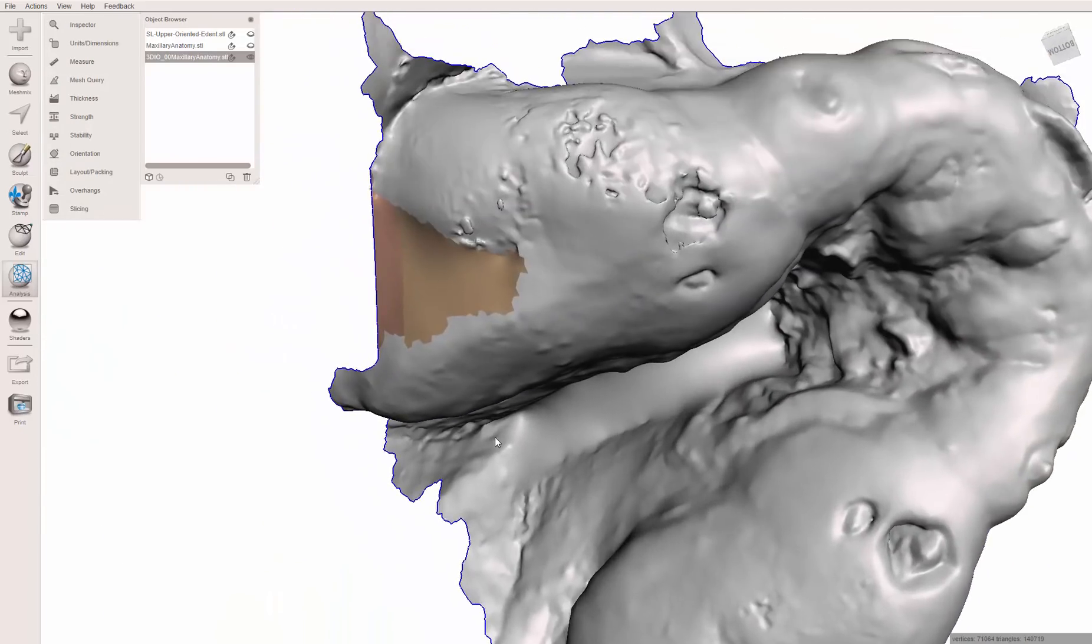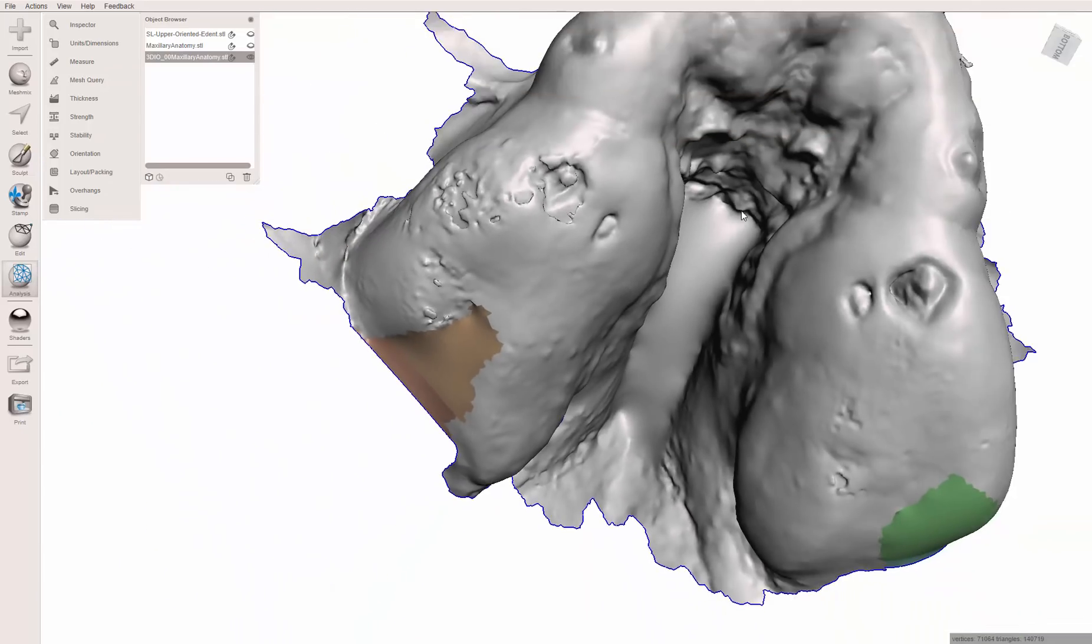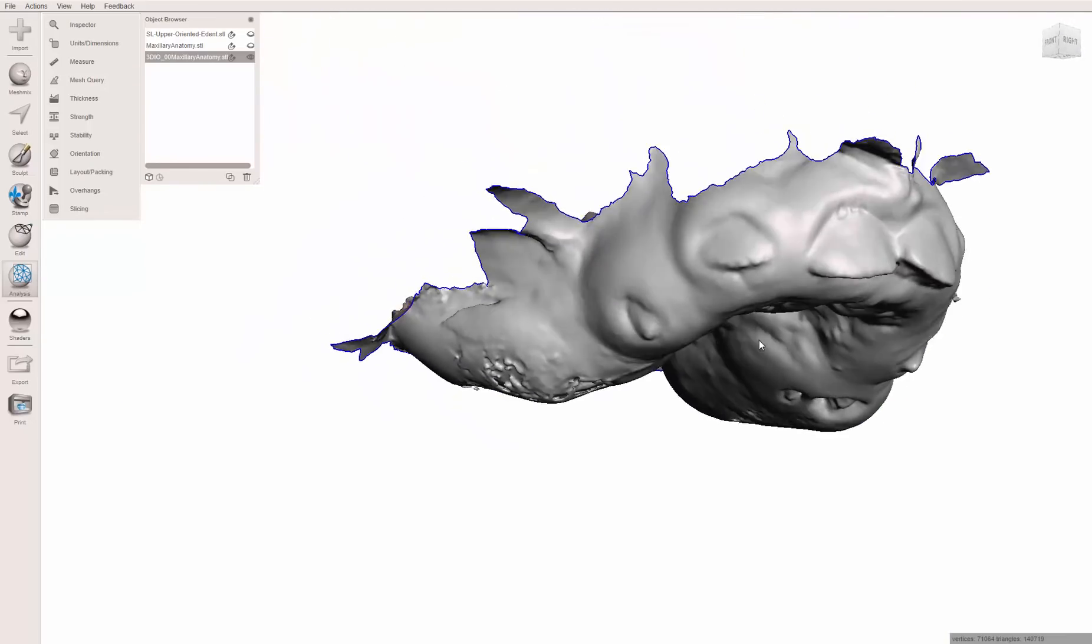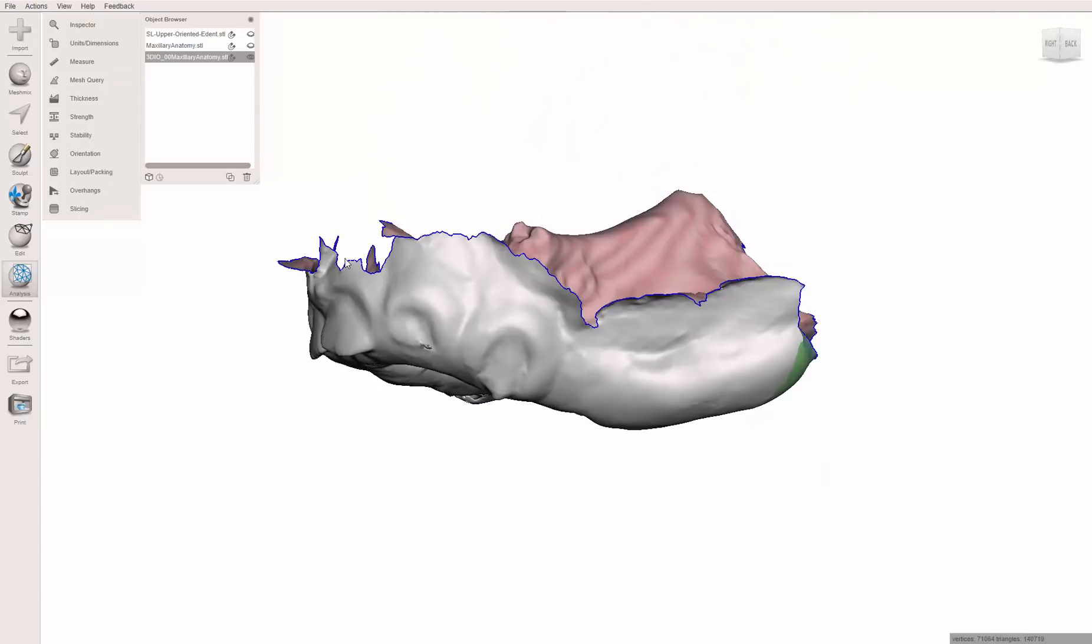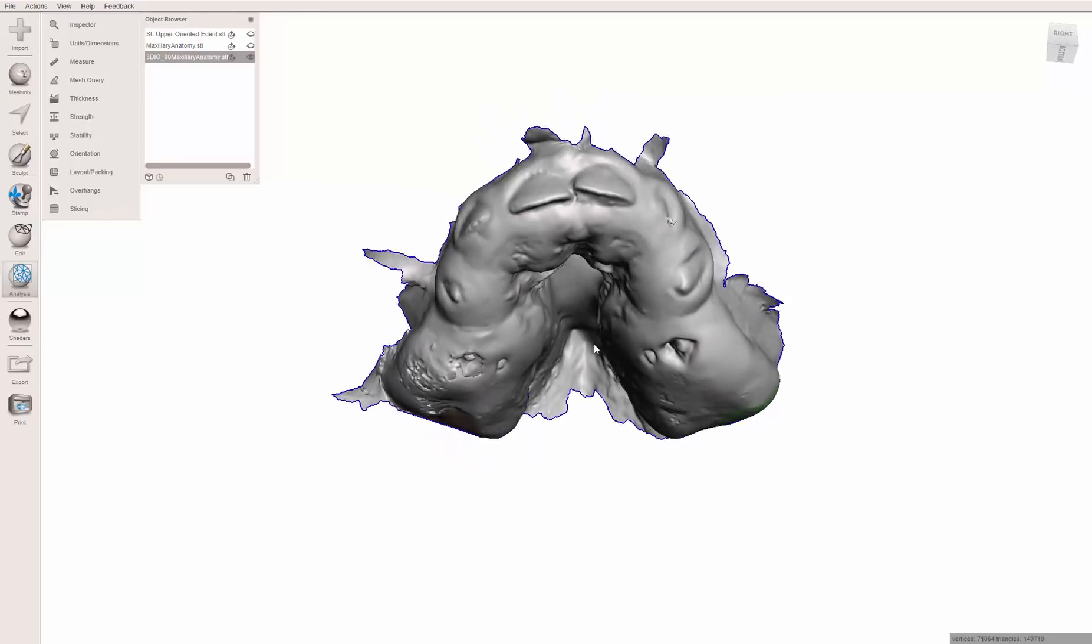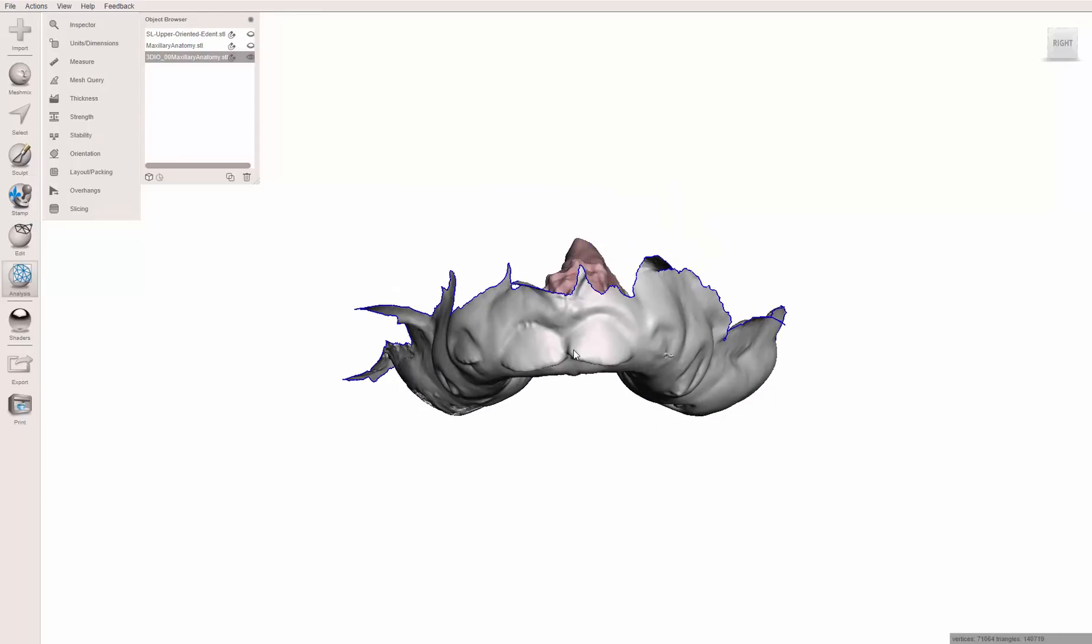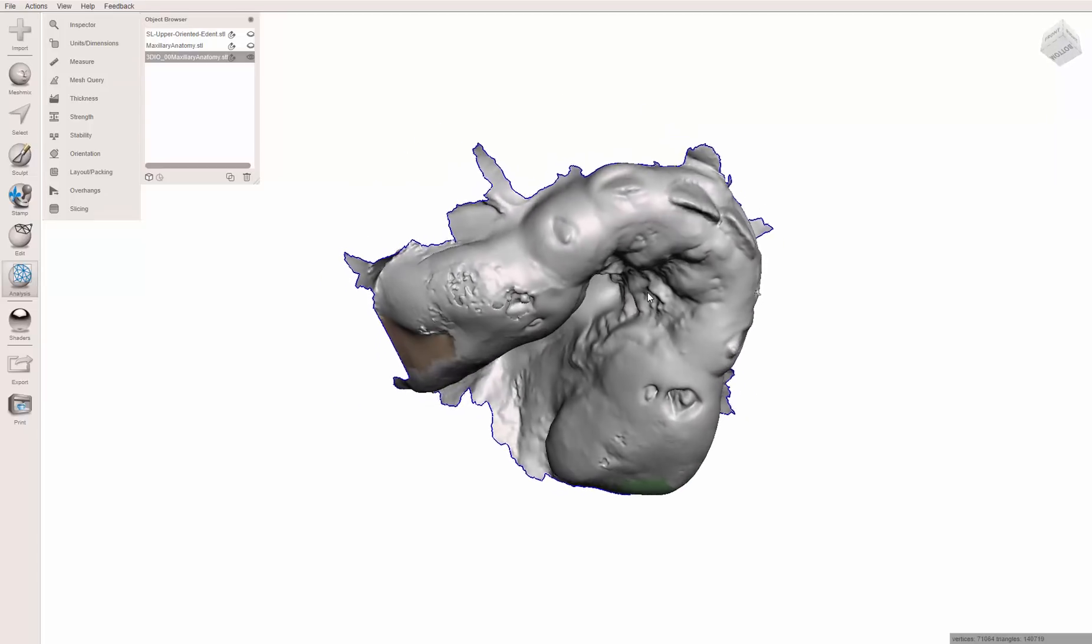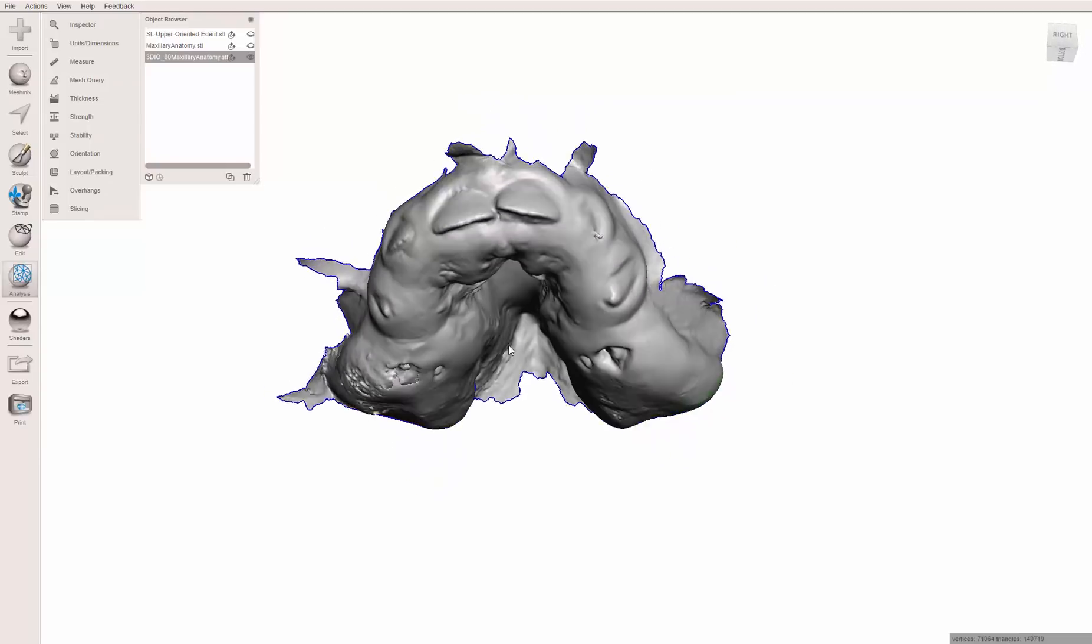Again, is it perfect? No. We are just guesstimating data here. But using the neighboring anatomy, I think that's pretty spectacular. Something that I honestly can't think of what other tools I could use to accomplish that. I've tried before adding different objects in here and merging together and like skewing them to try to fit the space. It's obnoxious. It takes forever and it never works out anywhere near as well as this. So anyway, I hope this tool helps out, gives you some little tips, what you can do. Again, I keep saying it, a new impression, a better impression is always going to be your best bet. But sometimes, you just got to take what you can get. And I'm sure all the lab technicians out there watching this know exactly what I'm talking about. And hopefully this can help make your day go a little more easily.